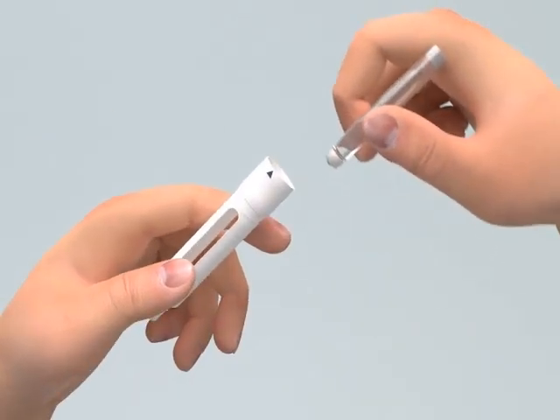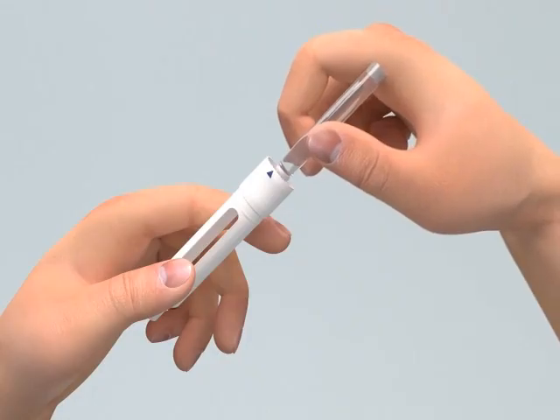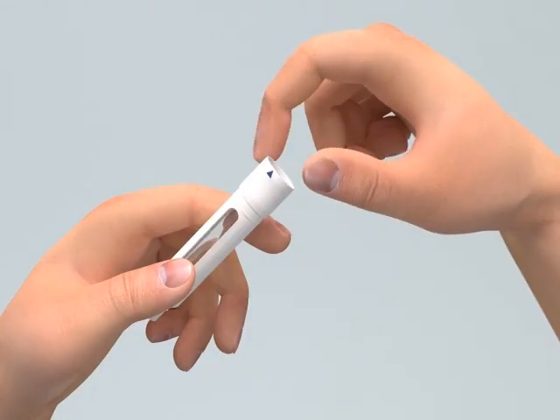With a cleansing swab, disinfect the rubber membrane of the cartridge. Insert the cartridge, metal cap first, into the cartridge holder.